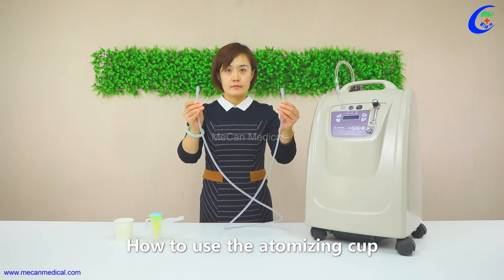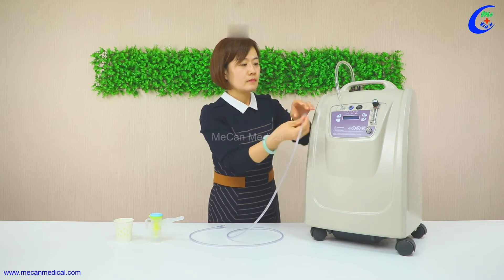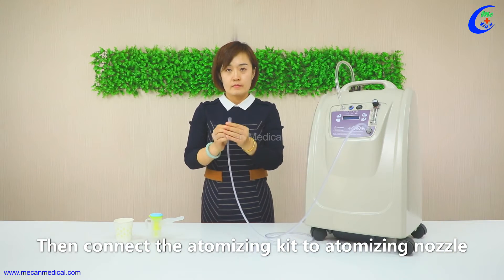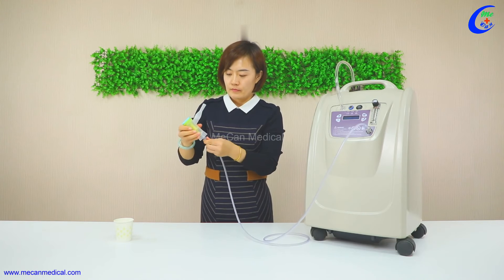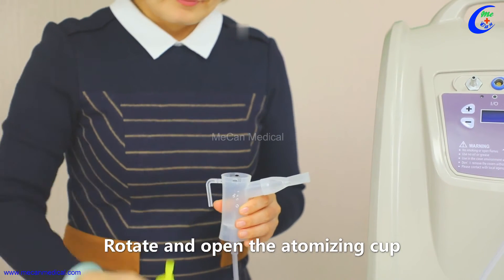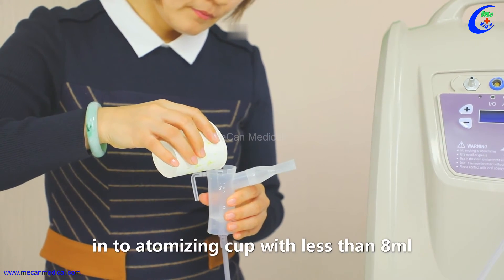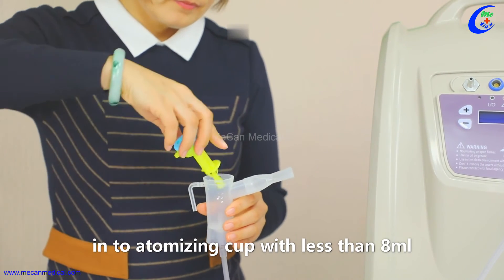How to use the atomizing cup: connect the atomizing kit to the atomizing nozzle. Rotate and open the atomizing cup, then pour the liquid medicine into the atomizing cup — no more than 8ml.